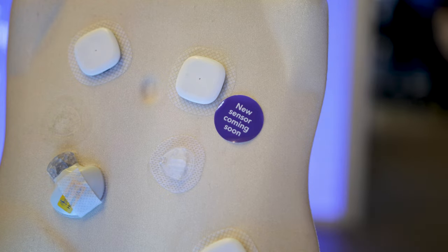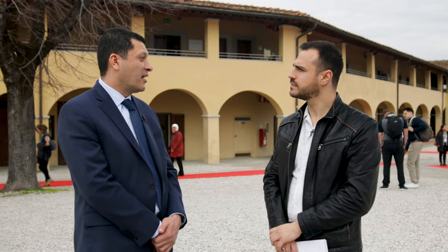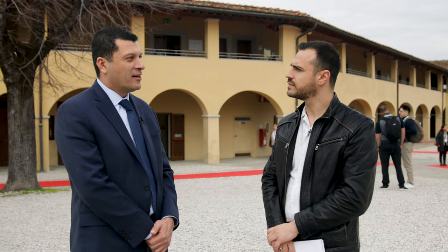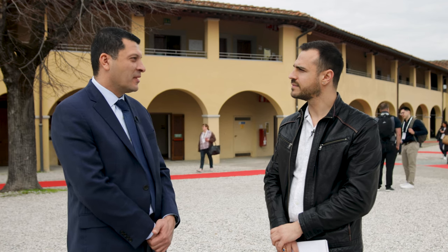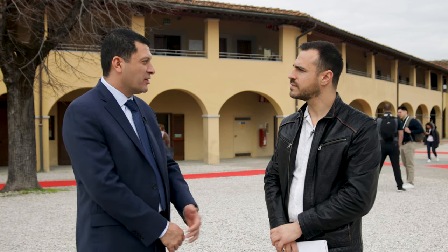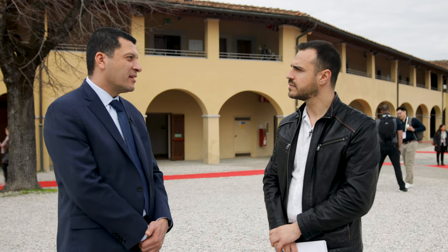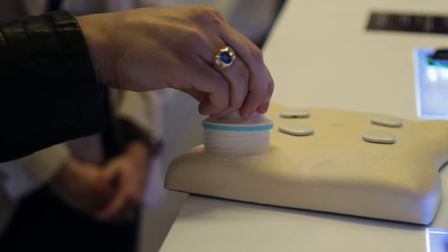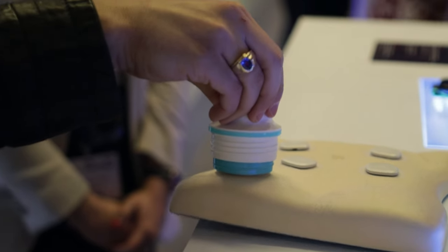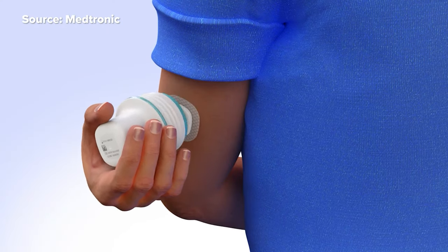A lot of time was spent making sure the tape is comfortable and easy to wear, especially for people who exercise a lot and tend to sweat, making it easy to forget you're wearing a CGM. The applicator fits nicely in the hand — take off the cap, place it on the back of the arm, push, and you're ready to go.